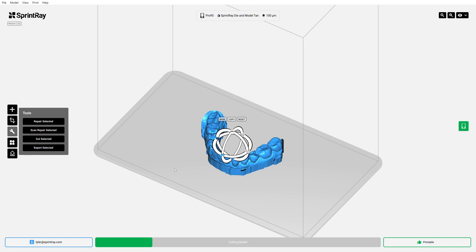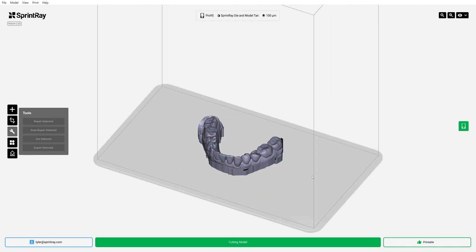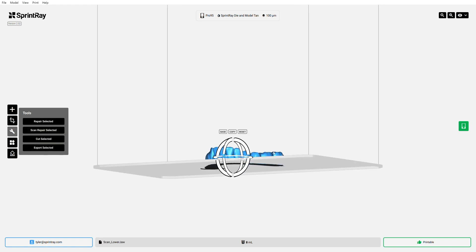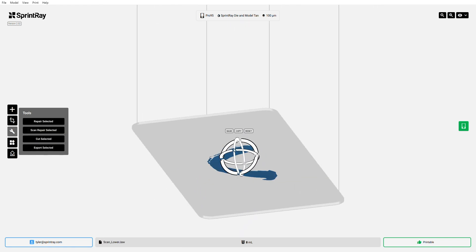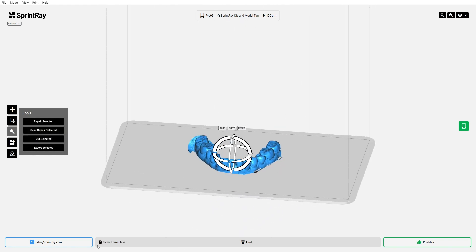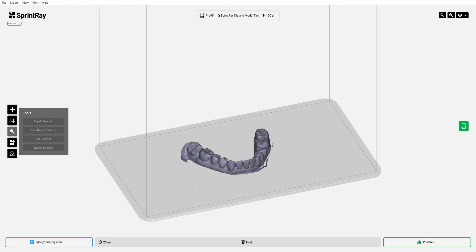And it allows you to make that final manipulation step on your model to get it to look the way that you want. So here we go. I've got my beautiful trimmed model. I've still got a nice beautiful horseshoe base. No problem there. And now this print is only going to take 25 minutes and it's only going to use eight milliliters of resin. So we've really done a nice job on this.